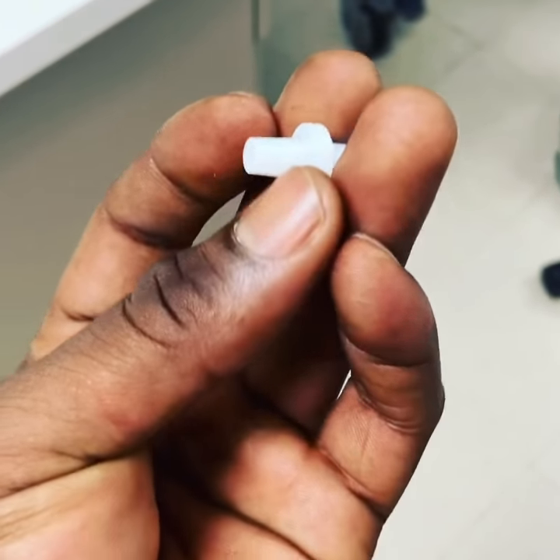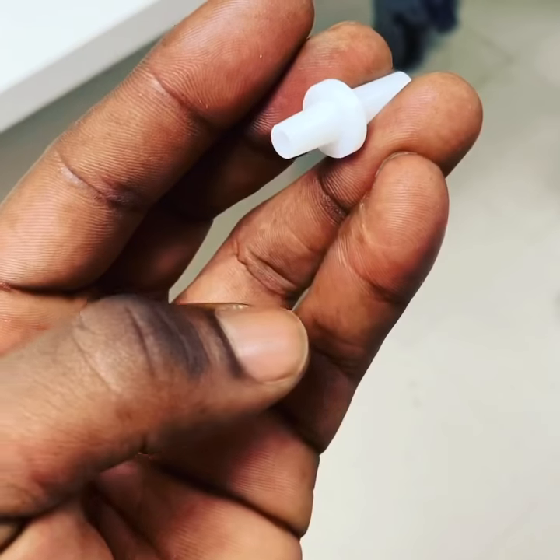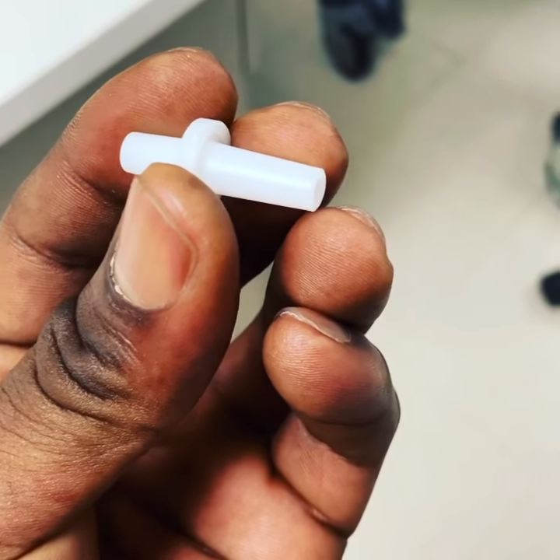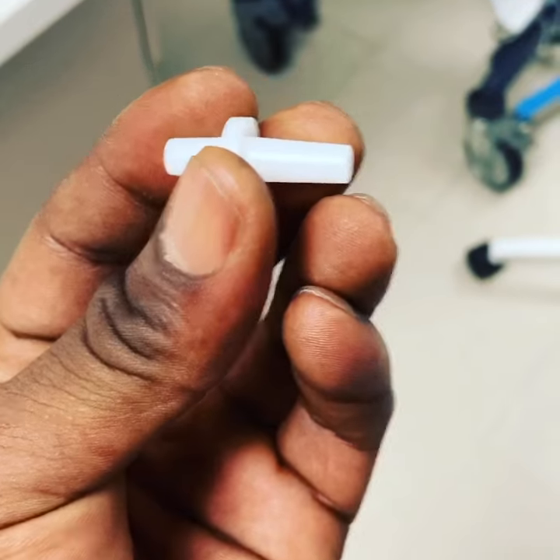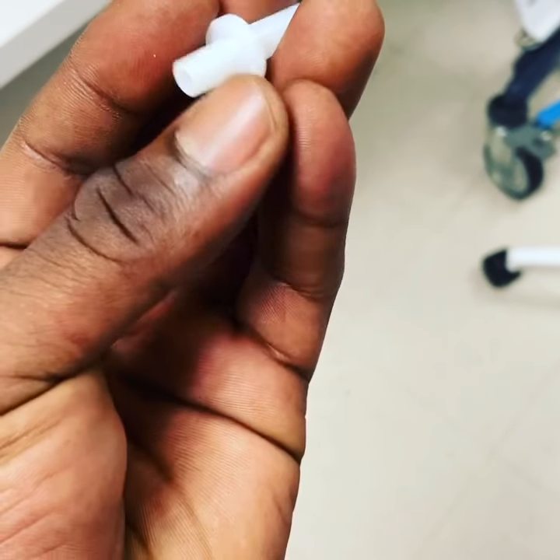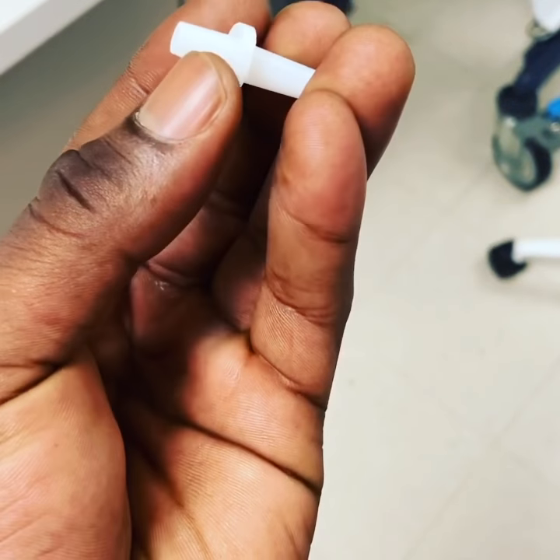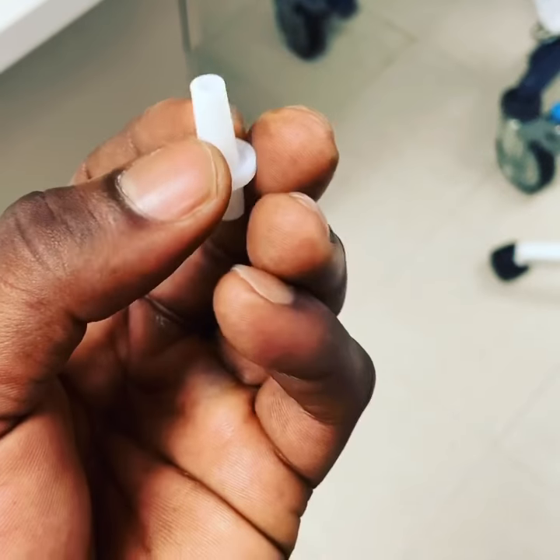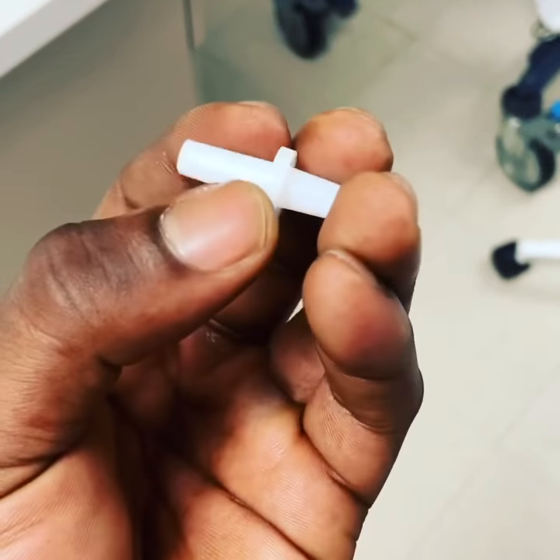Coming off their aerosol therapy and maybe on nasal cannula primarily — I've seen these used with nasal cannulas. You connect them in the middle of the connection as extra tubing, and keep connecting as much tubing as you need, so the patient can have mobility around the room with their oxygen device in place. So if you're looking for a connector piece for extension tubing for oxygen, this is what you're looking for.